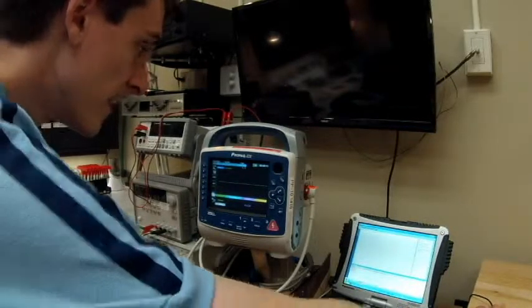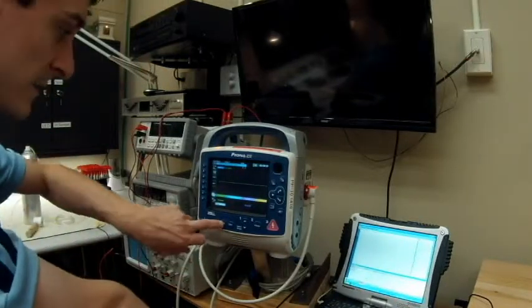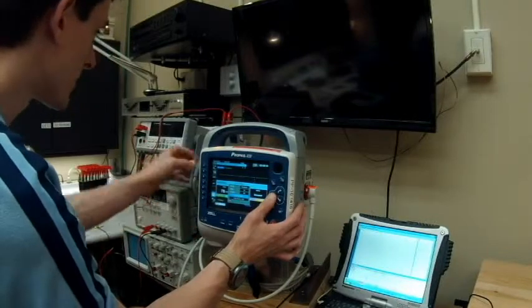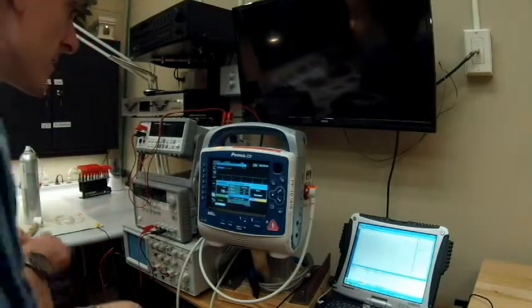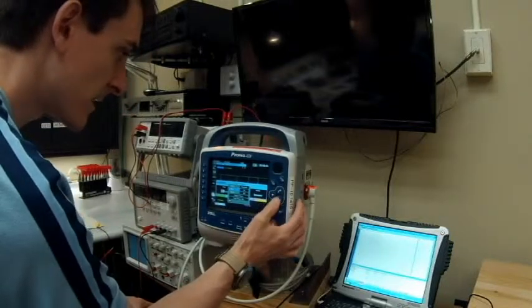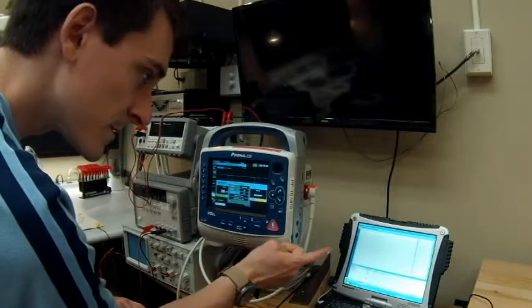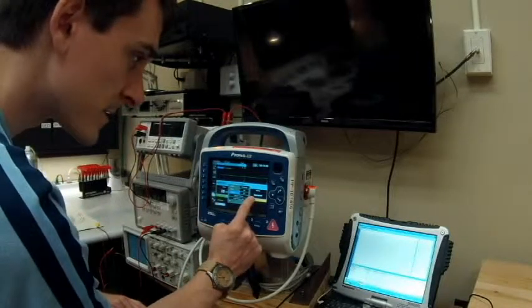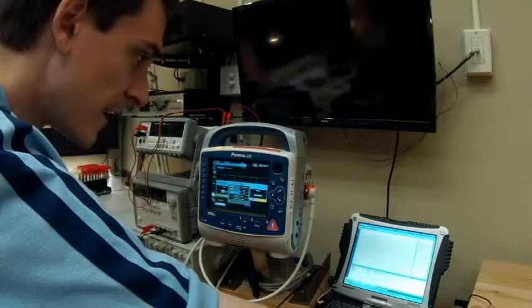I'll hit start right now. It says 'test in progress.' It's looking for measurement. We hit the pacer button, then hit 'start pacer' to actually begin. We want demand mode, the lowest rate possible, and the lowest output possible — rate is pulses per minute, output is in milliamps. We're at 30 pulses per minute with 10 milliamps input, and we're getting 30 pulses per minute and 9.84 milliamps output. That's great — the test passed.